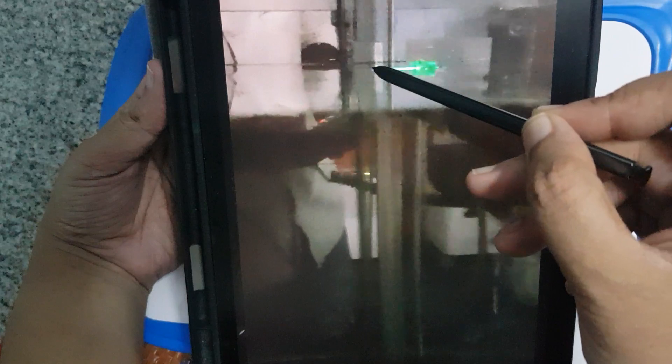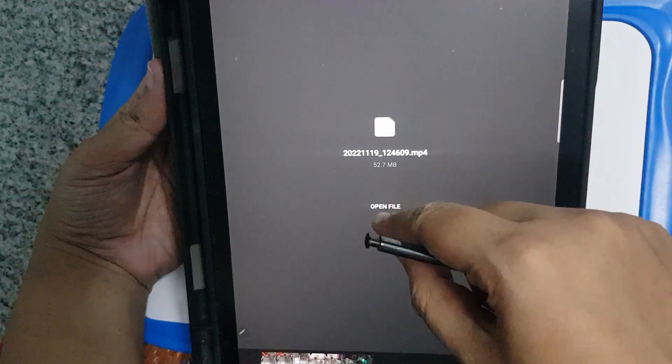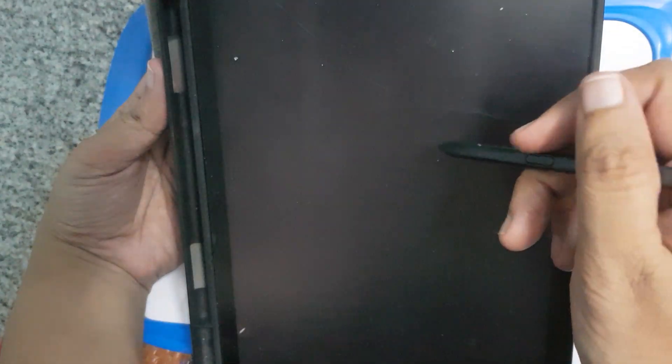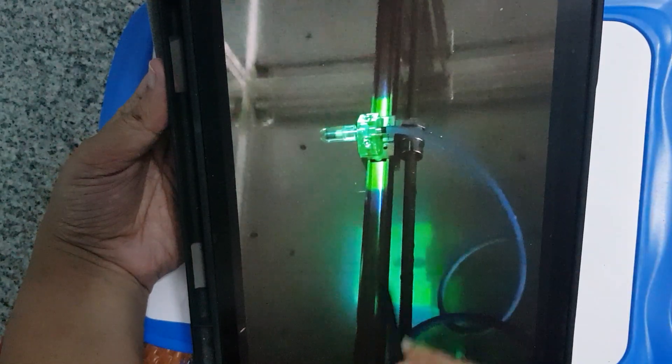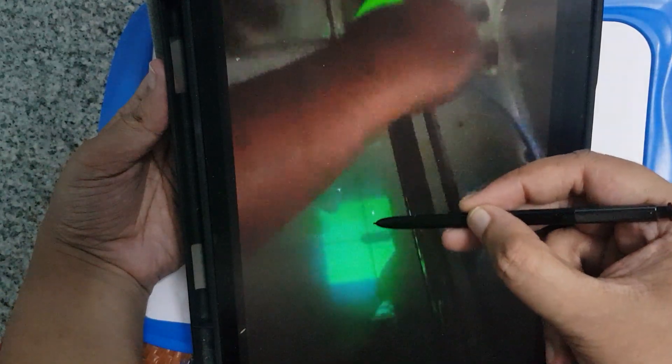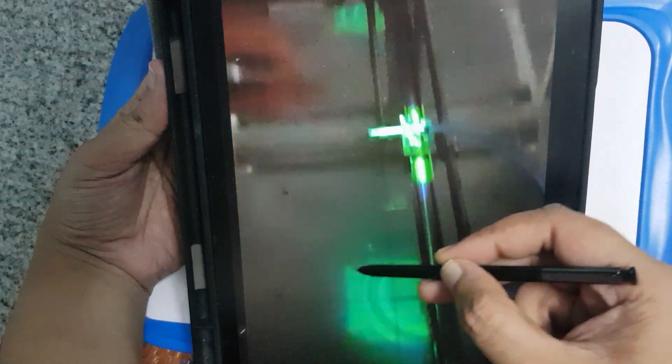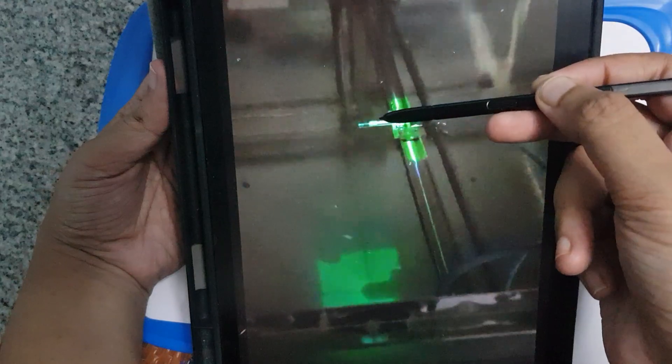Now that it has been moved to the surface, the source to surface distance we are measuring at 100 centimeters. Since this is at 100 centimeters, we are starting the beam profile, measuring the dose at this surface. This will cover this whole field size and measure the dose all along. It will move, so now it has moved like this, now it will move away, then this side, then this side.